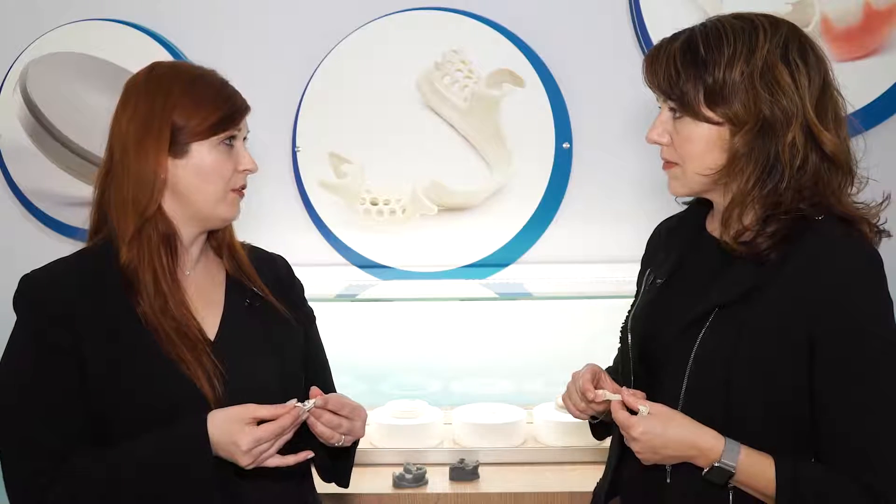I also see that these rests are a little bit wider, and then they taper, and they're tooth-colored. Aesthetically, this would be a pleasing material for a patient as well. We believe so, and our patients that have tried it so far absolutely love it. We've literally had patients crying when they put it in their mouth — these are patients that are experienced wearers of metal RPDs, and for one reason or another were having issues with it. Now when they put these in, they smile — the lightness is there, it's so much lighter weight than metal. It fits better, and their smile doesn't have the metal look to it. It's really had some strong impacts with our patients.